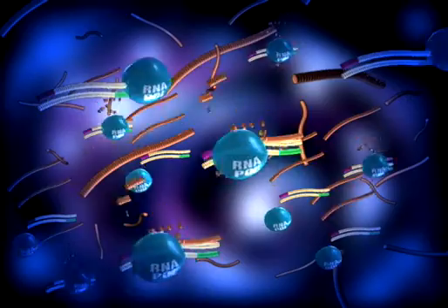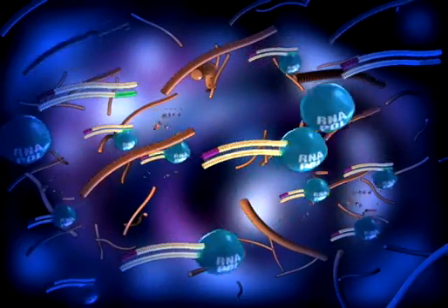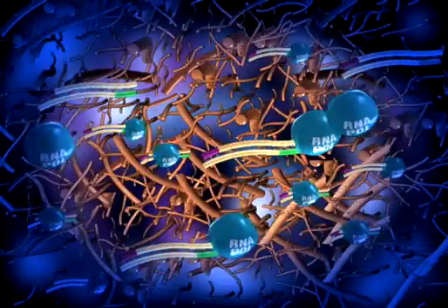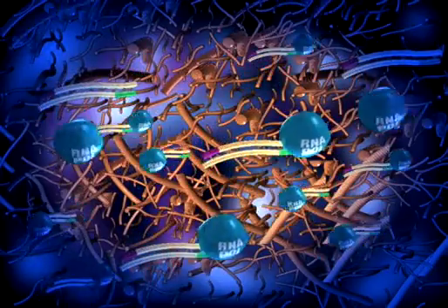Ultimately, transcription-mediated amplification generates a billion copies of the nucleic acid target within an hour's time.